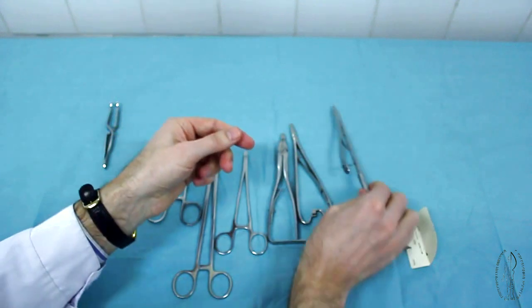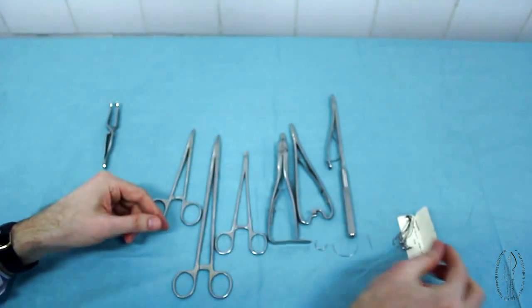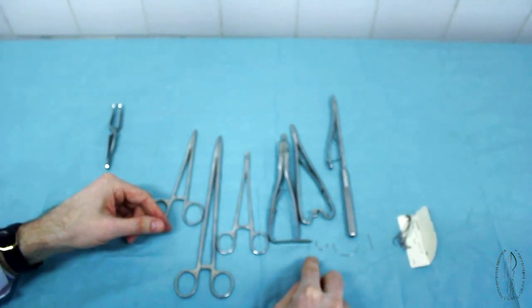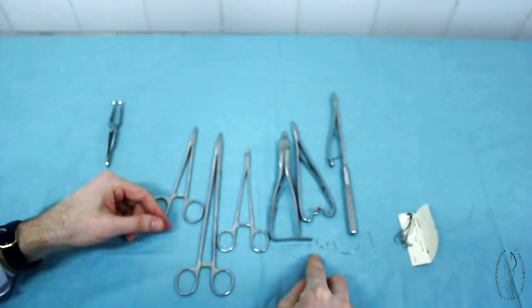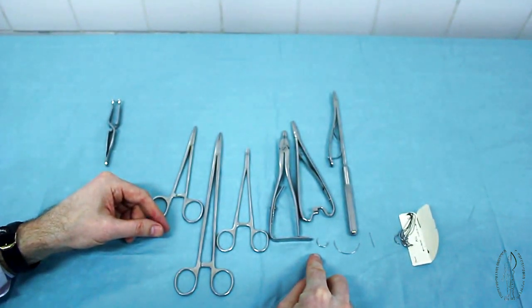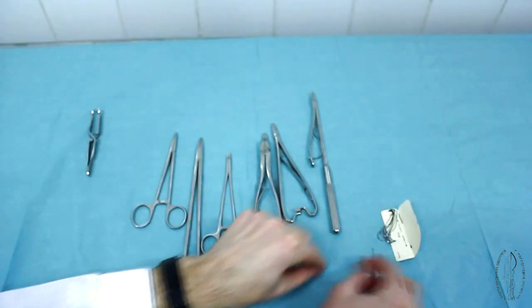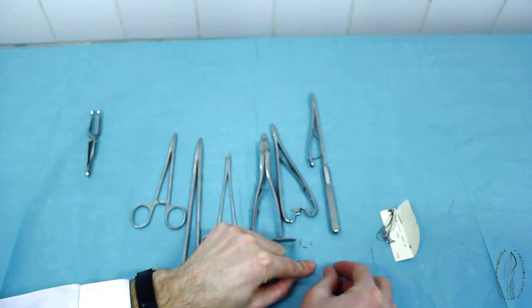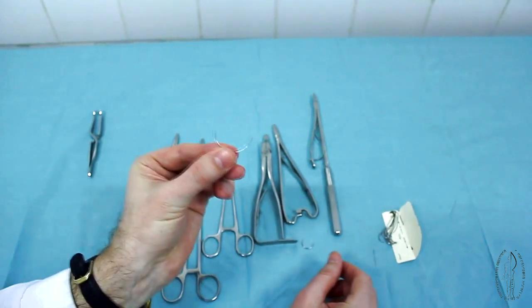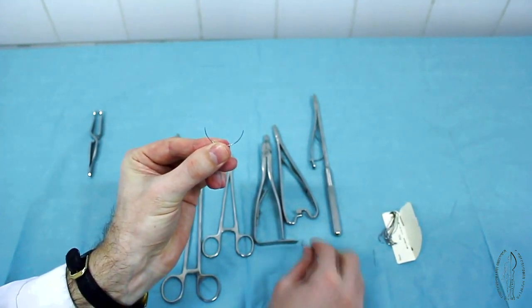Surgical needles are curved or straight, large or small with their own number. Curved needles by the form of a cross section are divided into triangular, cutting and round, piercing.